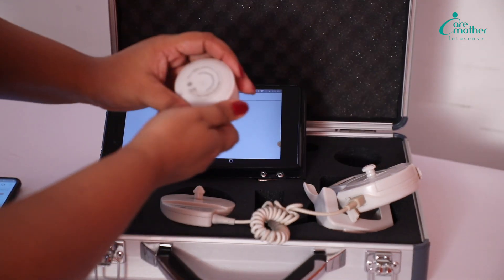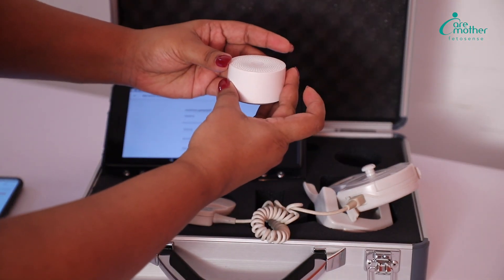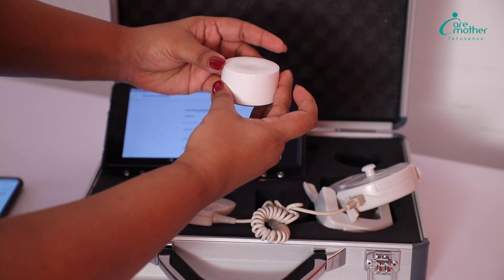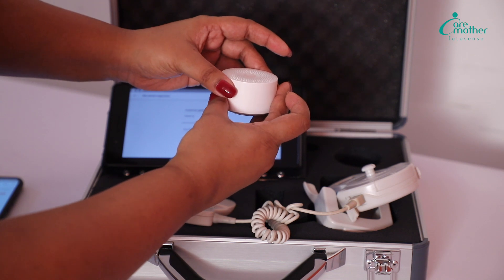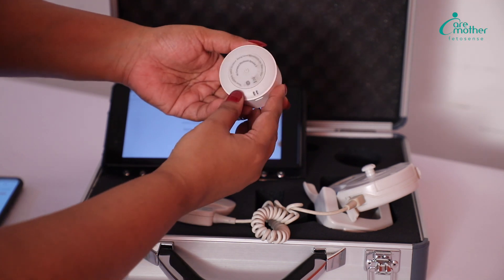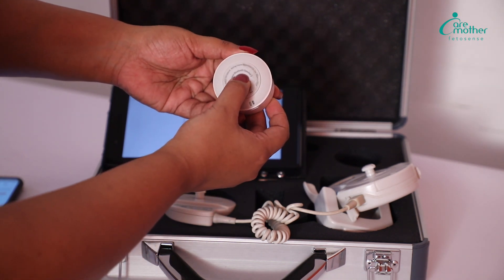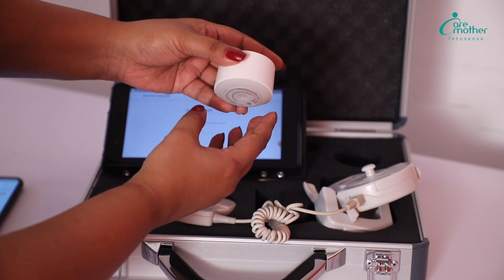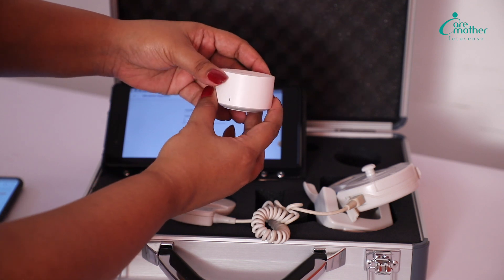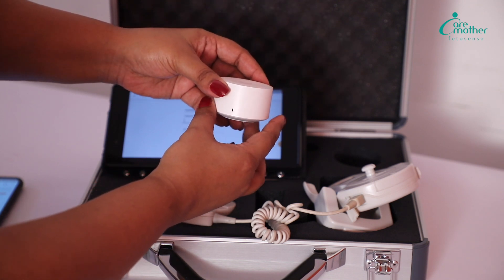Then we switch on the Bluetooth speaker, which will amplify the heartbeat sound of the baby. We give a long press at the bottom of the speaker, and it gives us a notification that it has come alive.